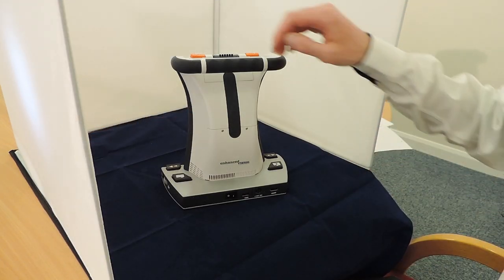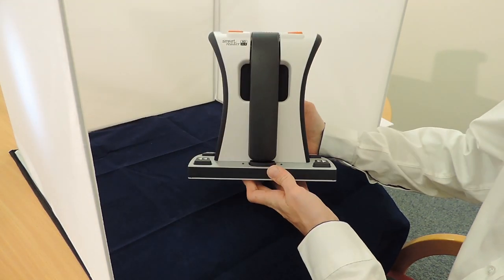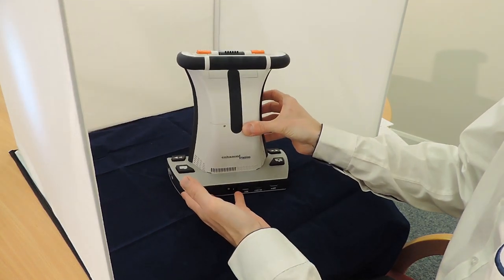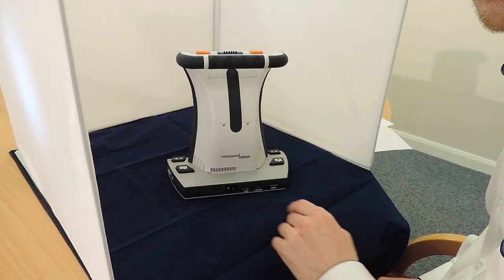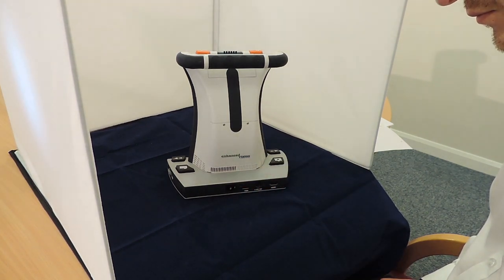The first thing that strikes me with the Smart Reader HD is how portable and versatile it is. It's perfect for reading magazines, letters, books, newspapers and other documents, and it has a built-in 8-hour rechargeable battery. Let's turn it on and have a look at the features in greater detail.